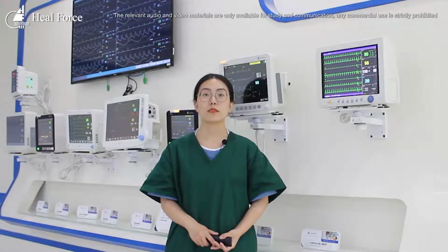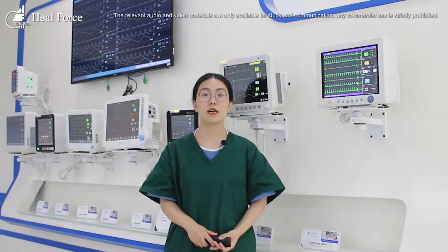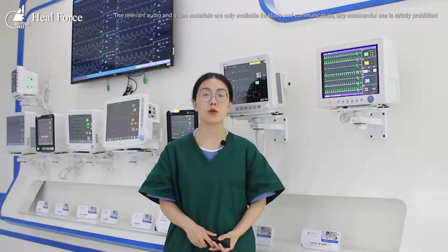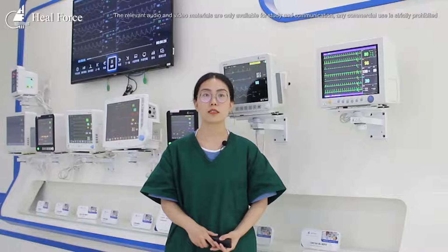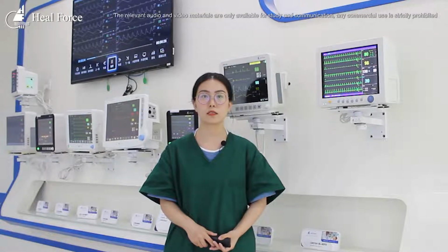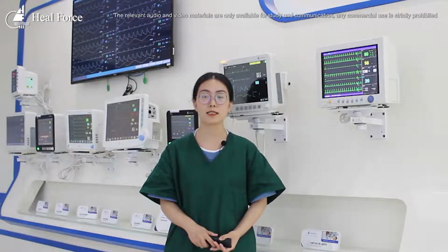Most of us know the patient monitor used in ICU, NICU, and the operating room, but fewer people know the definition of the patient monitor. So, what is the patient monitor? A vital sign monitor is a device or system that measures and controls the patient's physiological parameters, compares them with known set values, and issues an alarm if they exceed the standard.